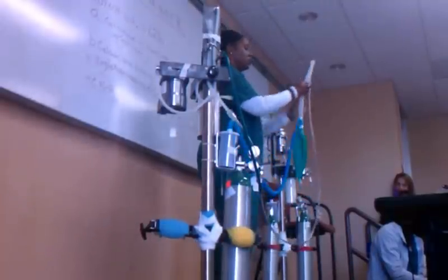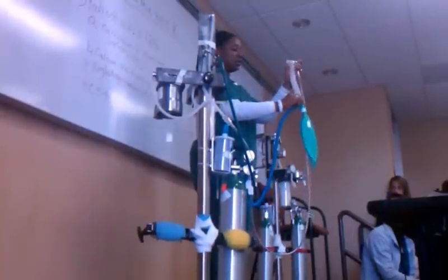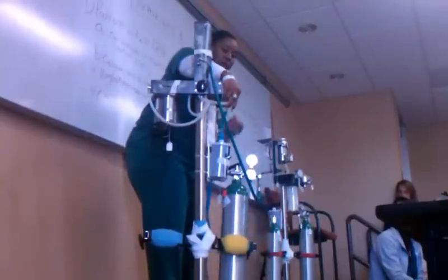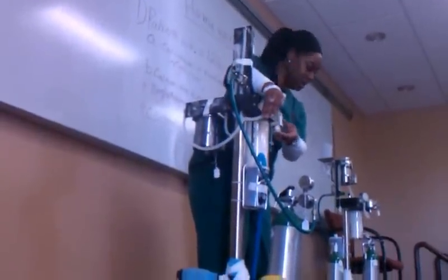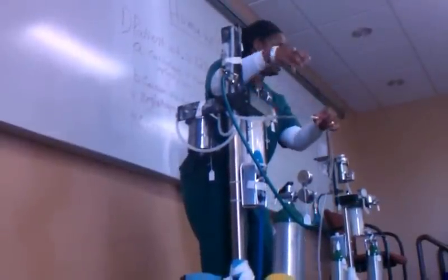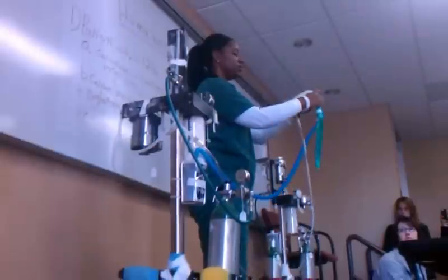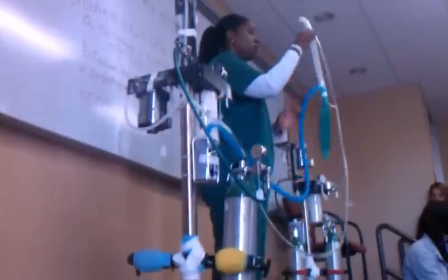Now this machine is appropriate for a small patient — less than 15 pounds — and they are using a non-rebreathing system. The most important part is that you know where the fresh gas is coming from, because on this machine it comes from the side here. As long as you remember to disconnect this and hook up the clear hose to the fresh gas outlet, the anesthetic gas and oxygen is going to be delivered straight to your patient through the clear hose. Exhaled gases are going to go through the clear corrugated tube into the rebreathing bag, or into the scavenger. That is a non-rebreathing system.